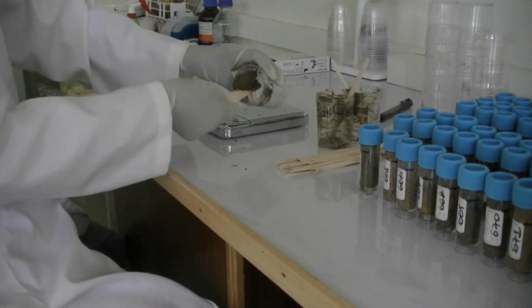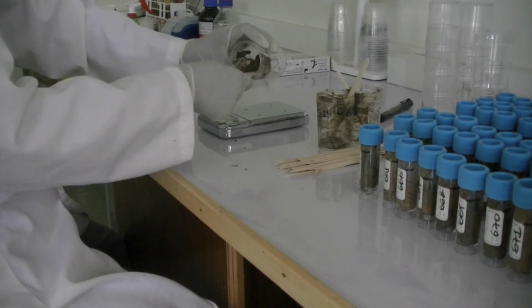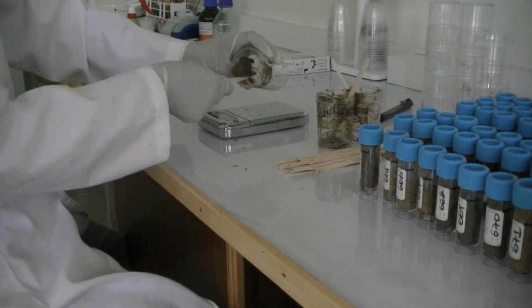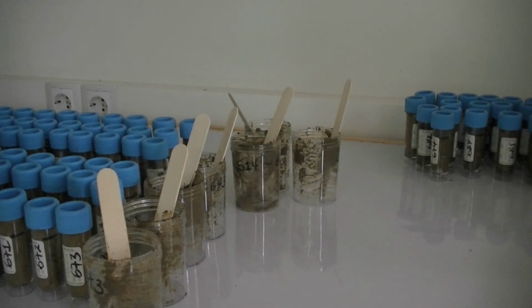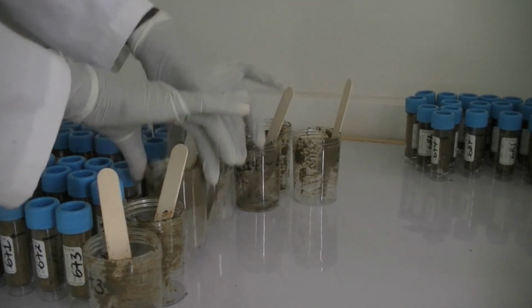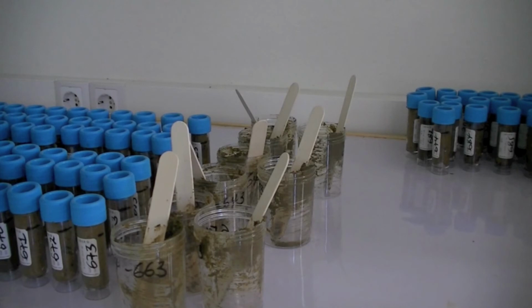Thoroughly homogenize the stool samples with a stirring device. Repeat the preceding procedure for the 2 remaining pairs of pools of 10 to obtain 3 pools of 20 individual samples. Each of these pools can now be processed with a diagnostic method.